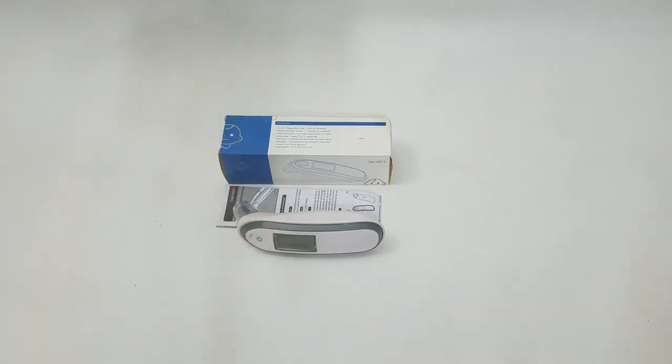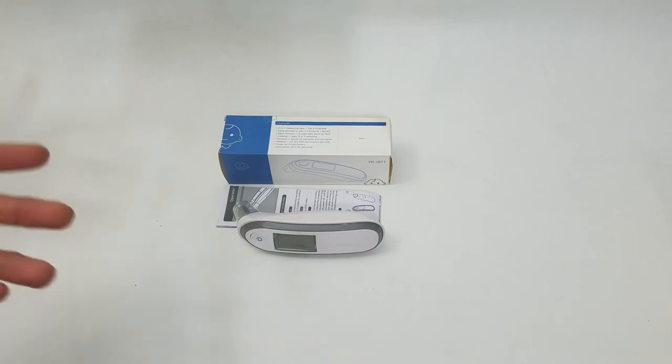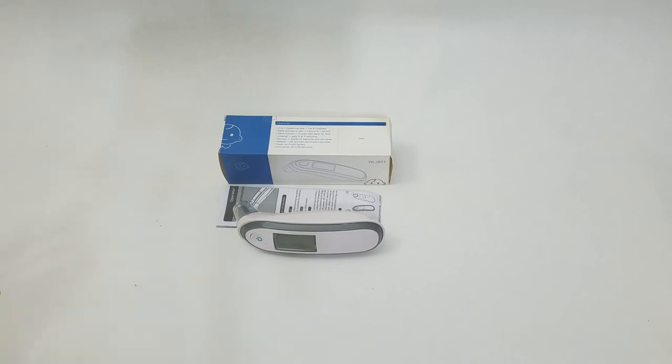I hope I don't have to use it, but if I do, I know for a fact that I can always rely on a quick and easy readout.